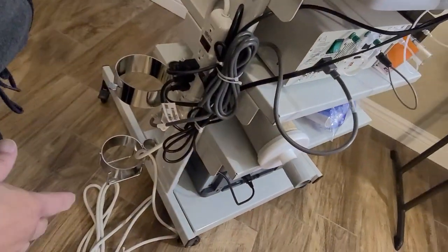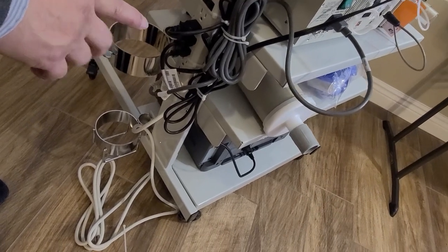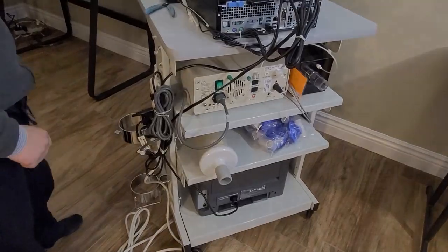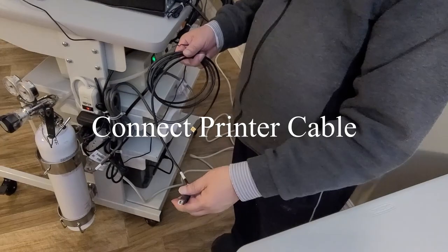So we've got most of the power cord done, except the weather station.